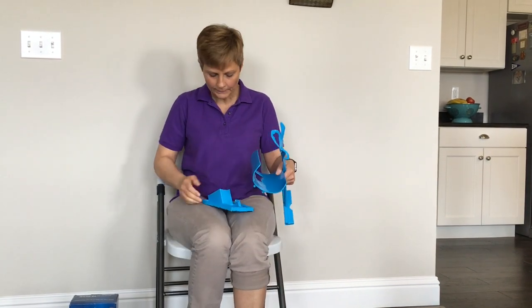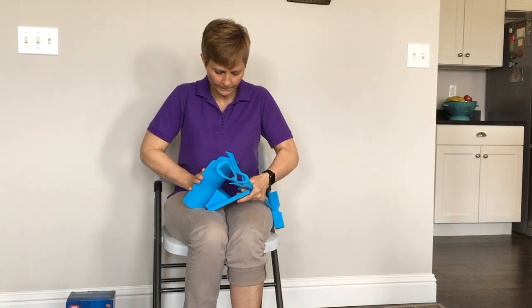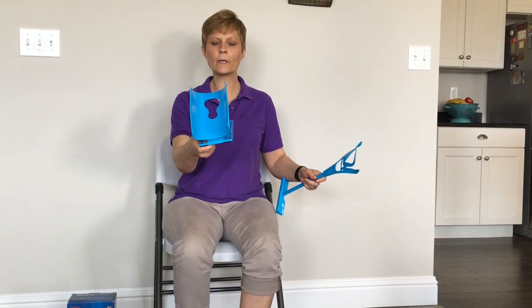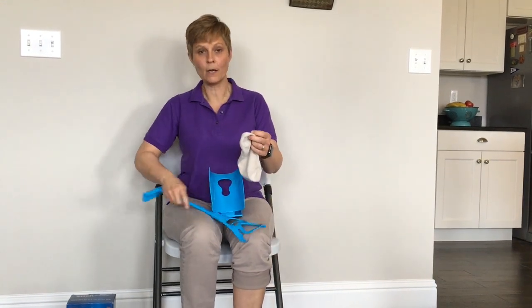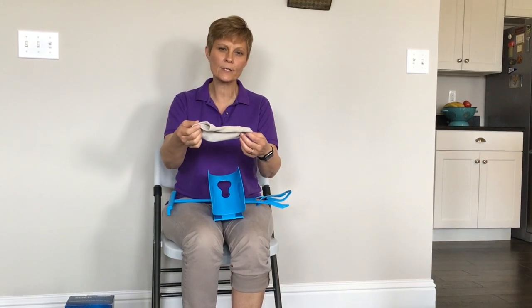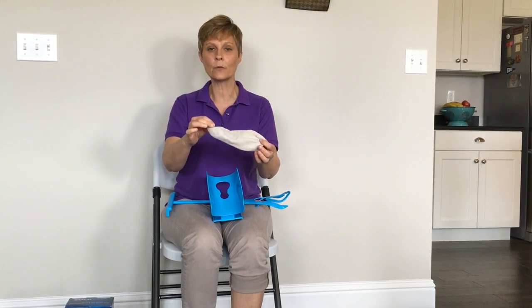So let's put this together. We'll put this base together — this is what it's going to look like. We'll get a sock and put this on the base. The first thing I'm going to do is use an athletic sock, and that's what's shown on the box. It advertises athletic socks, dress socks, other sports socks, and maybe compression socks. So we're going to take a look at a few of these right now.